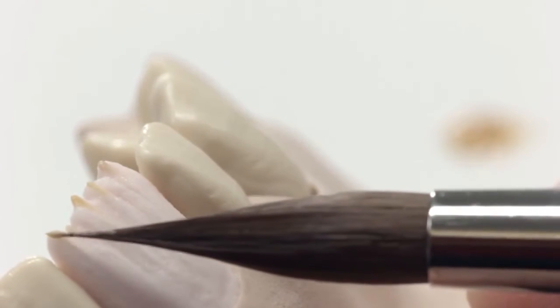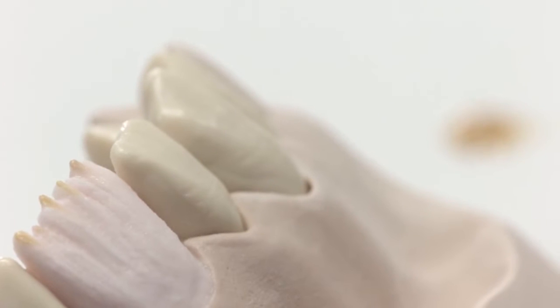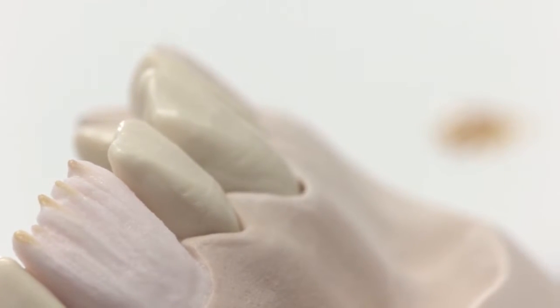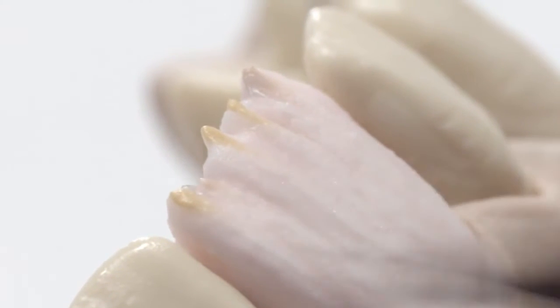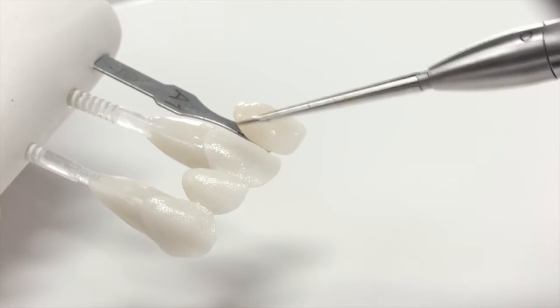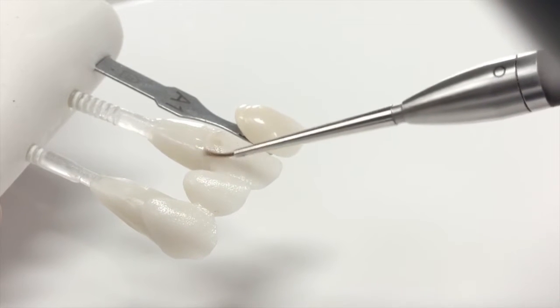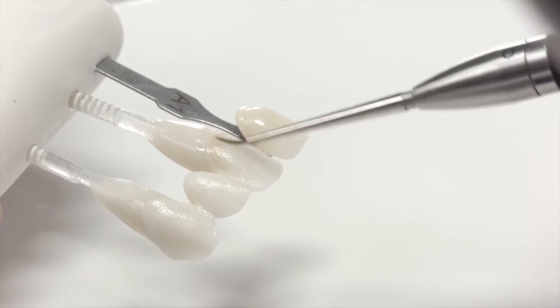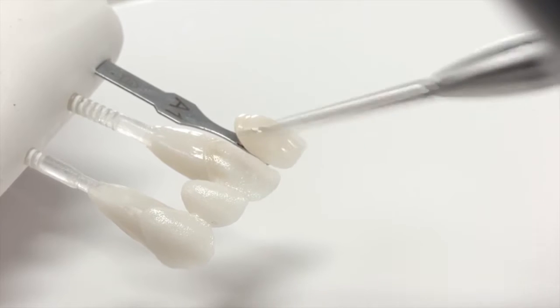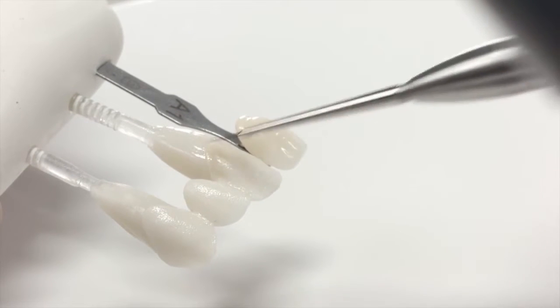It is also possible to lay the essence powders directly into the moist, layered ceramic. Another technique which can be used to individualize the tooth is to characterize the cutback and then perform a characterization bake.